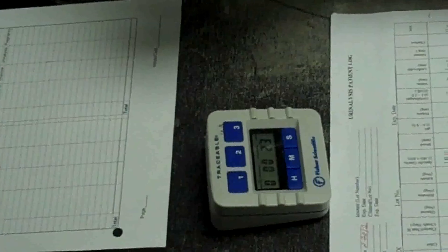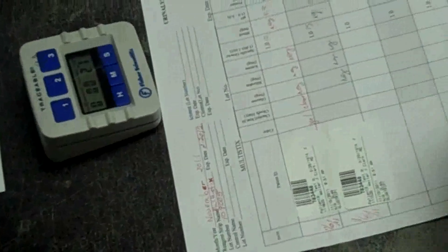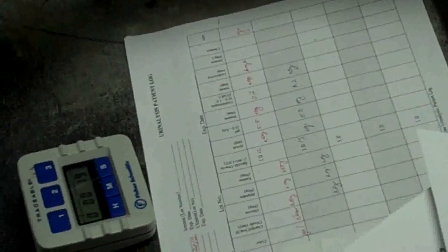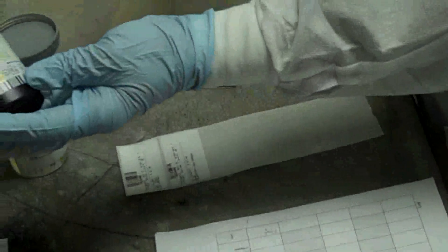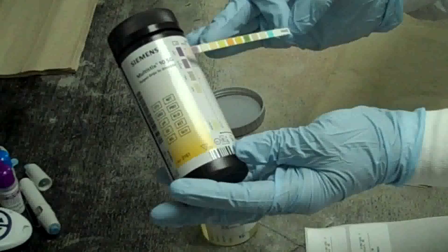Assure that you record all of your results on your urinalysis patient log, including the urine sample color and clarity, and initial your log.